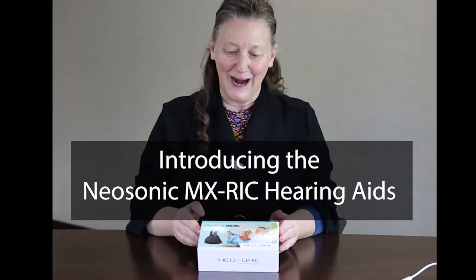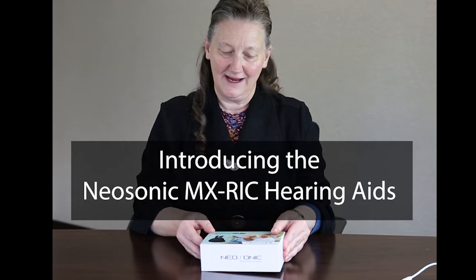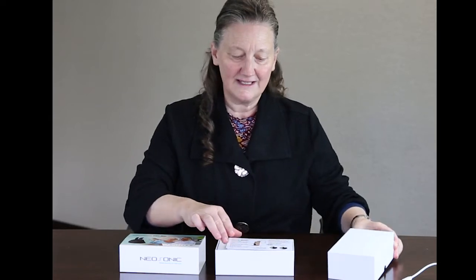Today I'm showing you our Neosonic MXRIC style hearing aid. RIC stands for Receiver in the Canal Device, which means the receiver is sitting inside your canal.